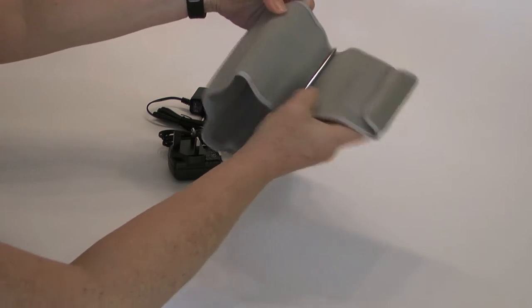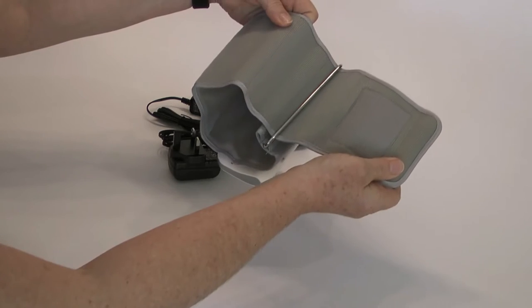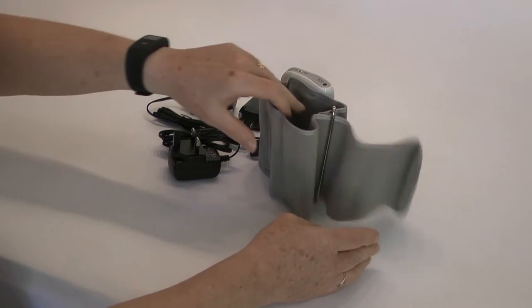The blood pressure monitor is for upper arm use and it has an expandable cuff.